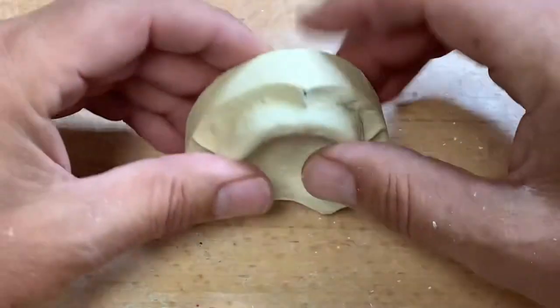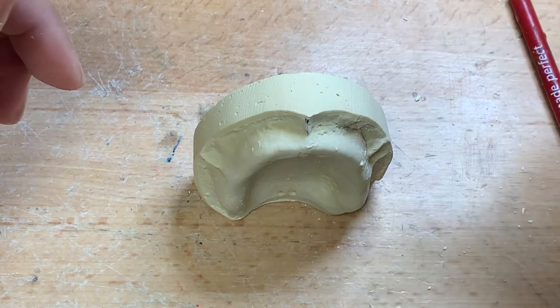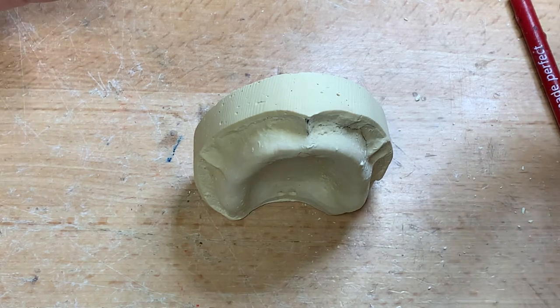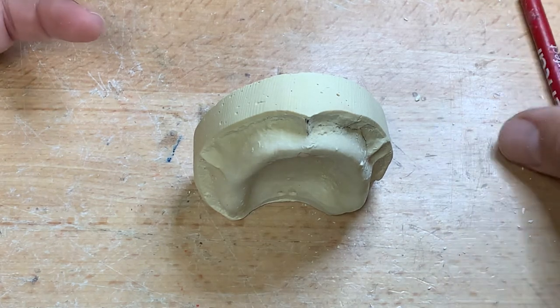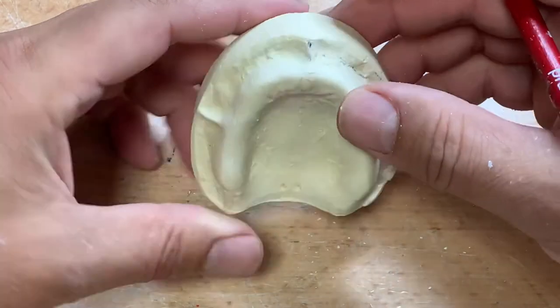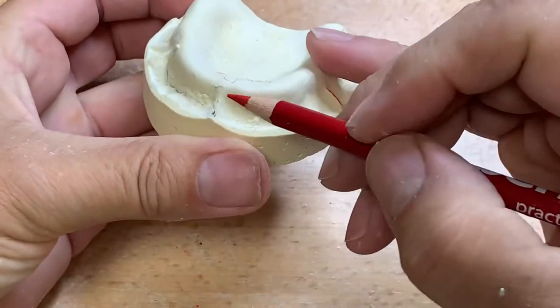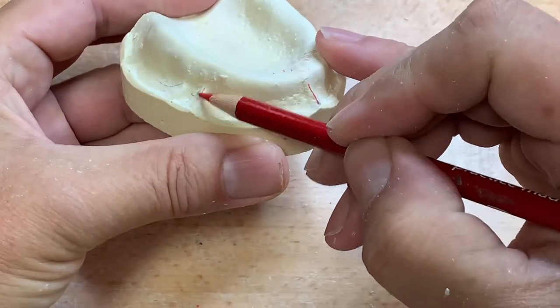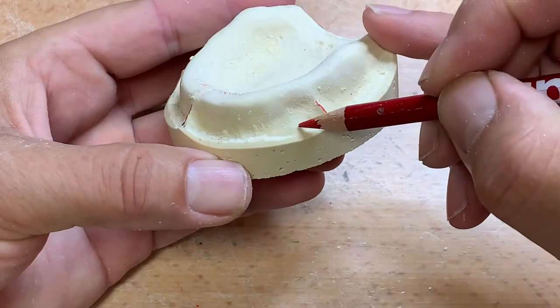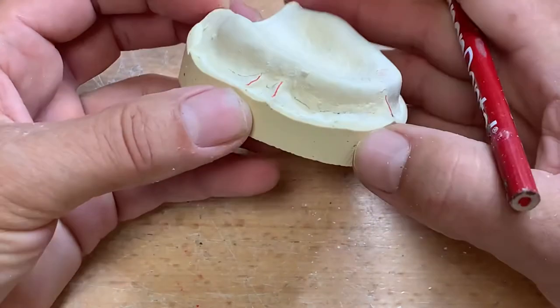Generally speaking in the dental laboratory marketplace, receiving work from the DDS, they seem to be using polyvinyl siloxane — generalizing here in Ontario. So it'll be a functional impression. What we need to do is with our pencil — you can see these strong frena here that have been blown out from the alginate impression being overextended or overstretched. It looks like we have one, two, three, four here — one on the first quadrant, a strong one down the midline, and two down in the second quadrant.